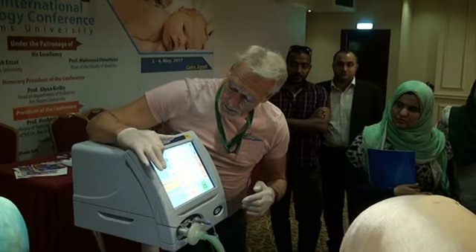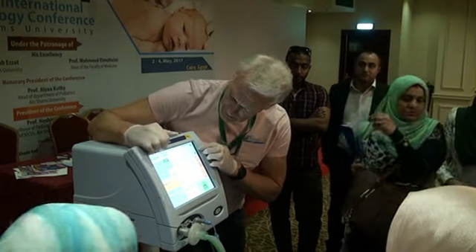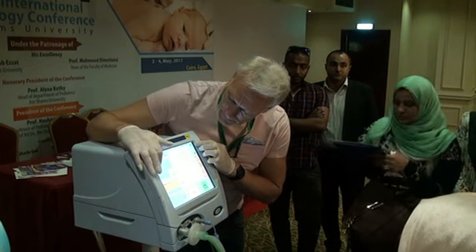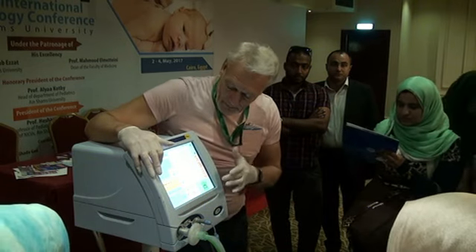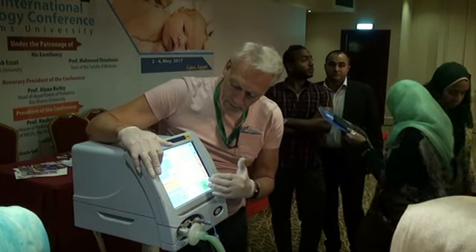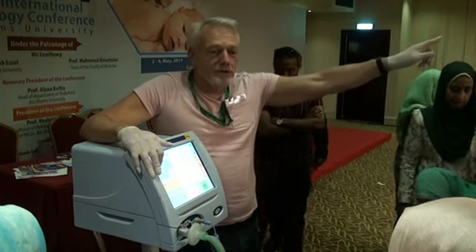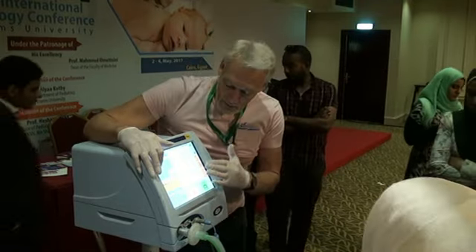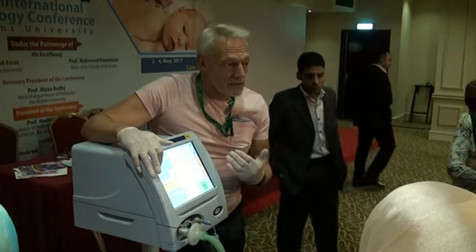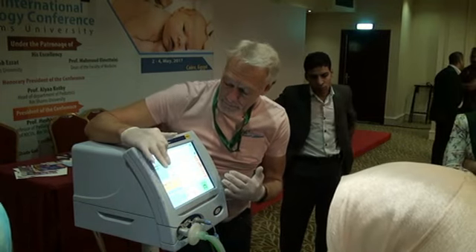Sometimes these can be very helpful at working out whether you've got the right I time, the E time. I'm not going to go into that, you're going to talk graphics over there. But if you understand your graphics, that can give you a clue as to why your baby's asynchronous.